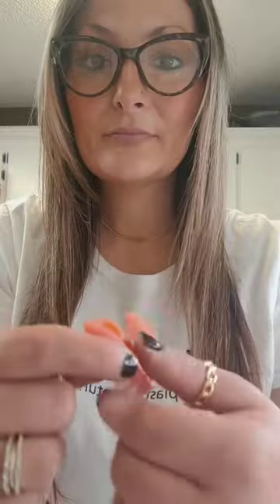Now let your denture sit for five minutes. Seat your top denture in your mouth first, and then place your lower denture in and bite down for 30 seconds to a minute. Bite down firmly at first, and then naturally. Try not to clench your jaw.